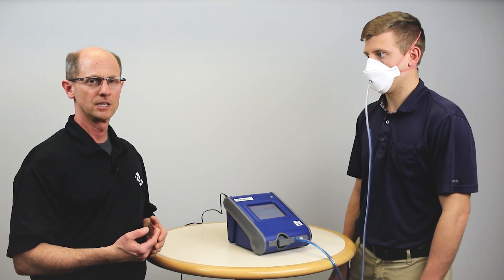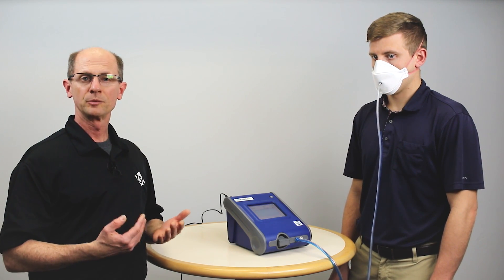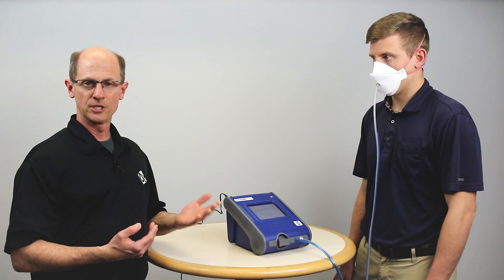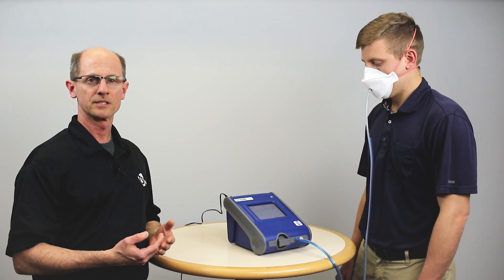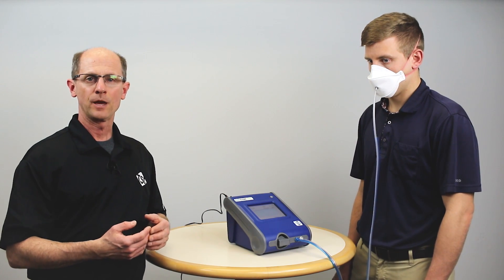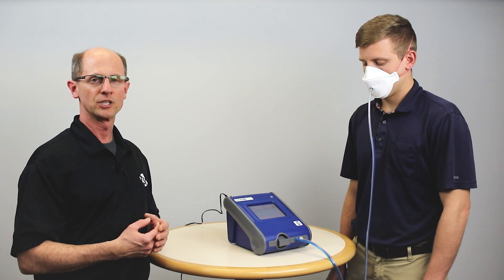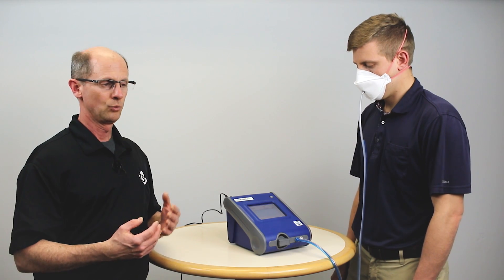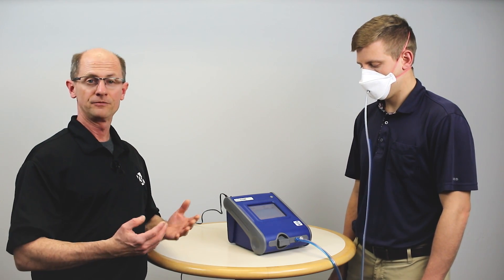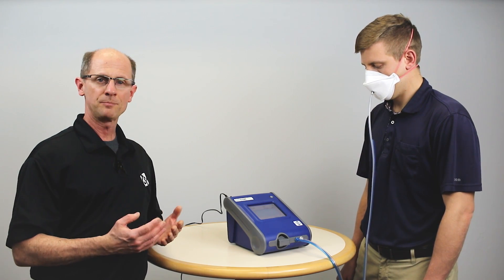Another use of real-time fit factor display is troubleshooting a failed test. If Ben had just finished a fit test and failed, I would have him leave the mask on, go into real-time mode, and watch the screen as we make the same adjustments on the respirator to understand what has to change to make it fit better. If you can't get a good fit, maybe it's not the right size mask — we'll try a different size.